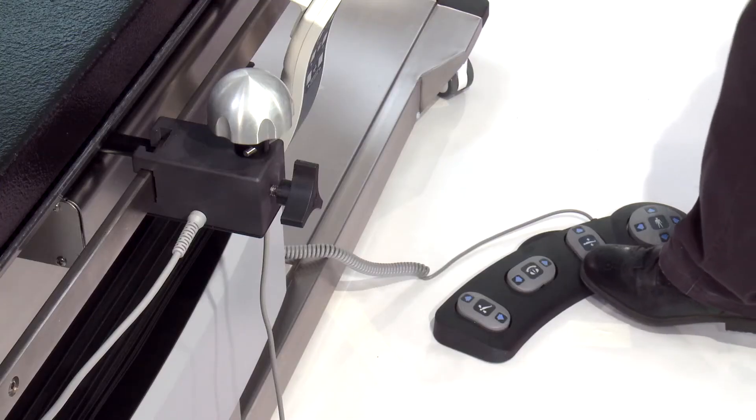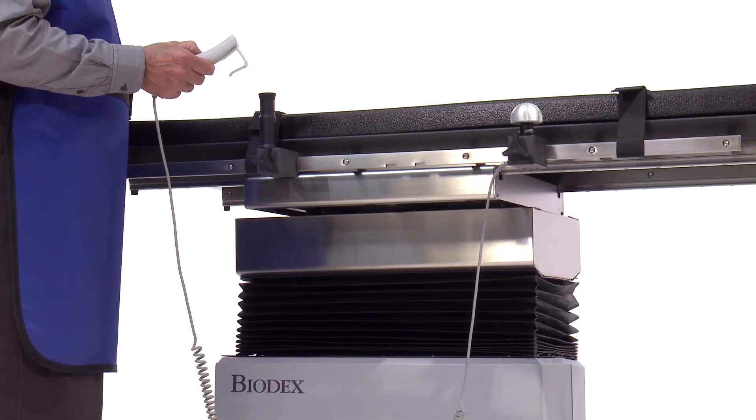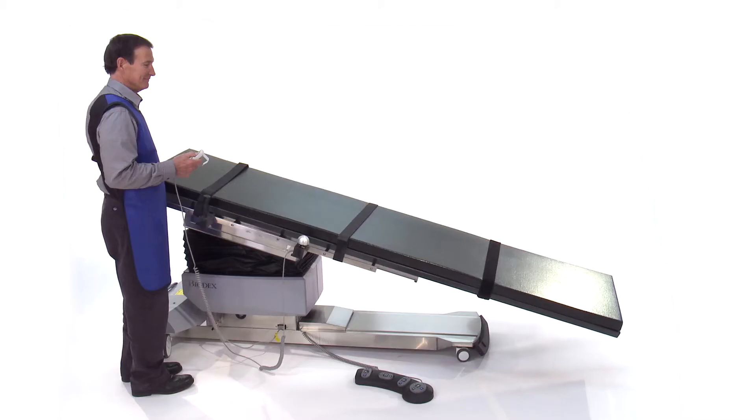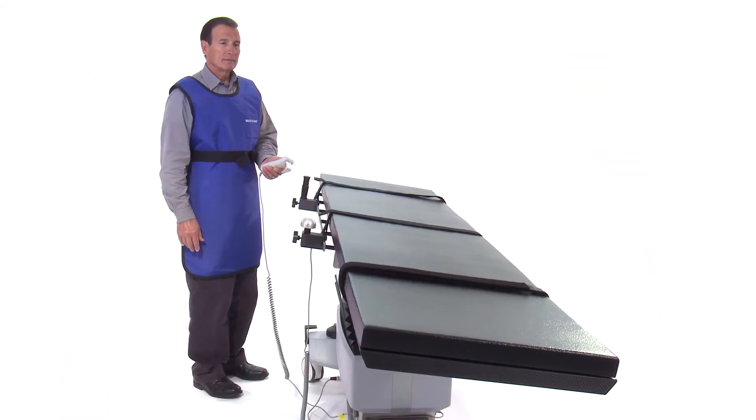Easy-to-operate foot and hand controllers allow for quick and safe adjustments of table height, Trendelenburg motions, and isocentric lateral roll.